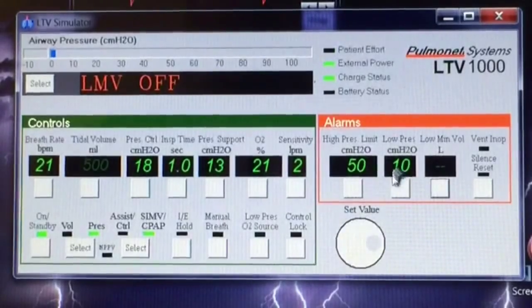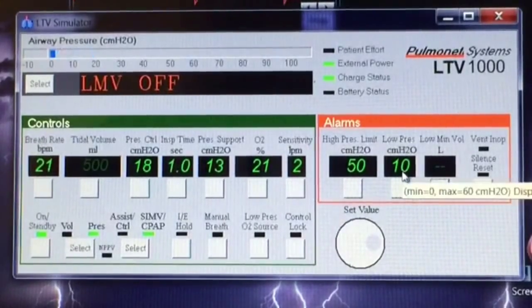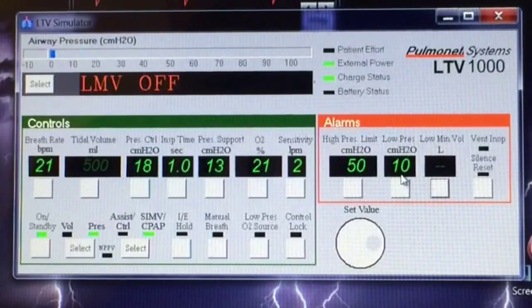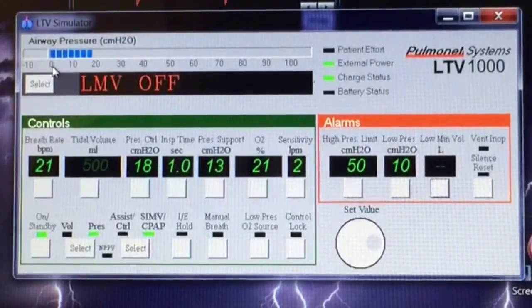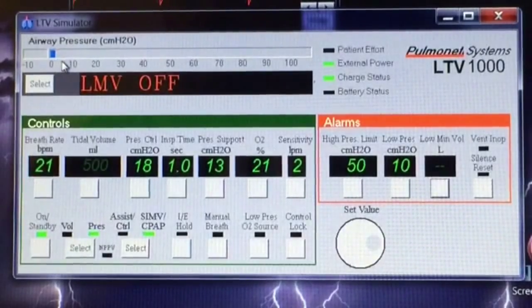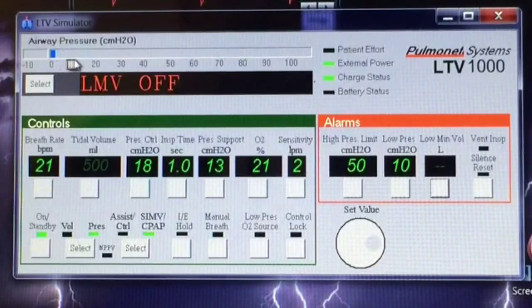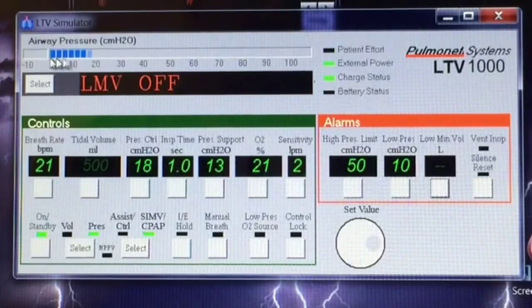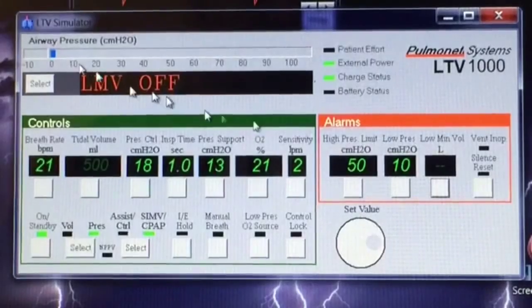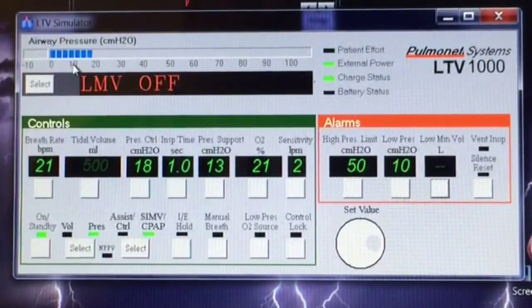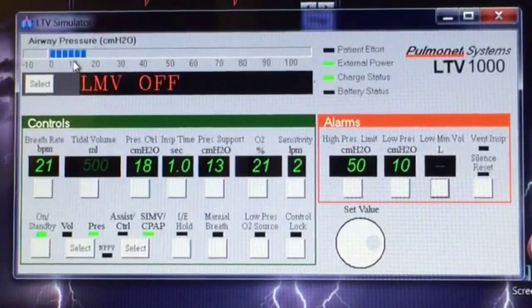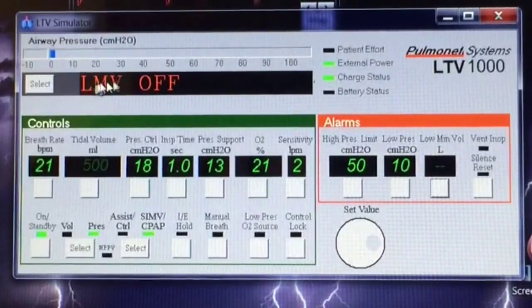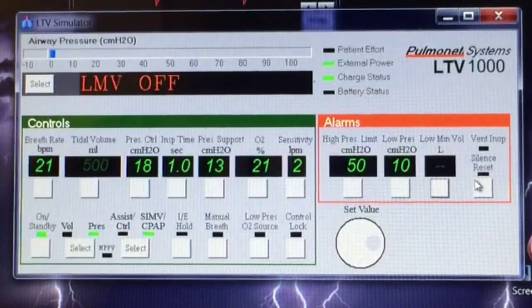The low pressure alarm — in this case it's set on 10. That's usually a sign that the ventilator tubing has become disconnected. Right now I don't have any PEEP dialed in, so the pressure goes to zero after every breath. But as long as the next breath goes above 10, it will not alarm. If during the next breath it does not go above 10, then it will sound the low pressure alarm. You'll see it here and it'll also beep.